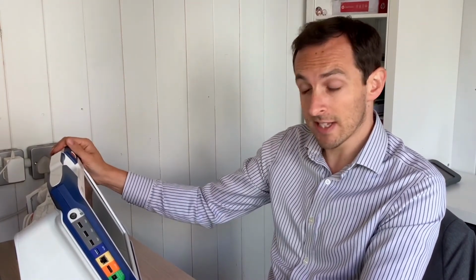I normally support troubleshoots and implants throughout London and the South East, but today I'm going to take you through the 3300 PSA and programmer.